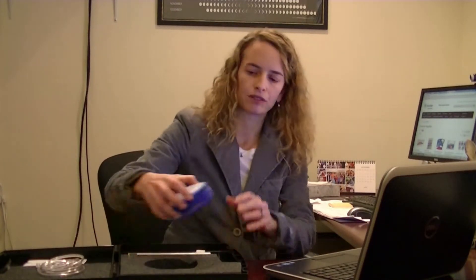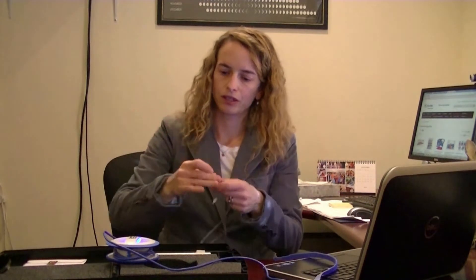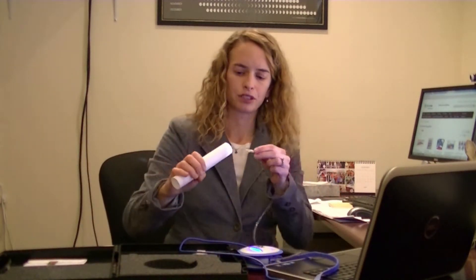The Orbit is a full-function spirometer that's powered by a USB connection to your laptop. It consists of the spirometer itself with its USB attachment that goes on the side of your computer, tubing that connects the spirometer to the mouthpiece, and the mouthpiece, which comes pre-calibrated, nose clips — which are recommended by the American Thoracic Society for accurate pulmonary function testing — and software, which calculates patient data, stores results, and coaches on proper PFT technique.